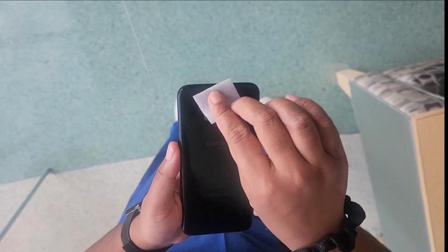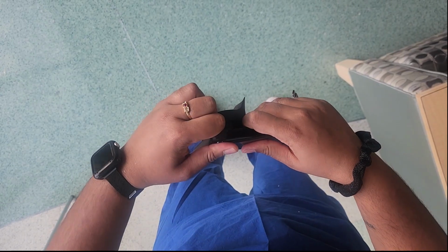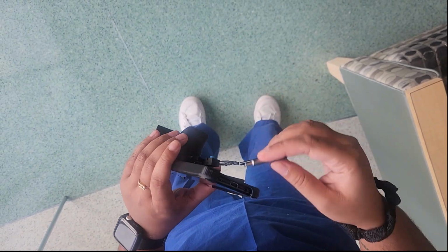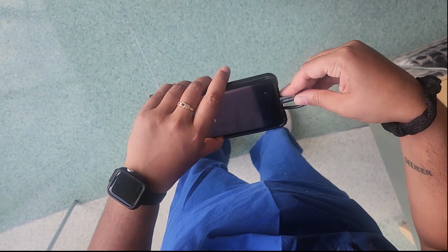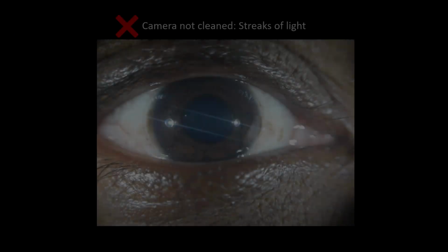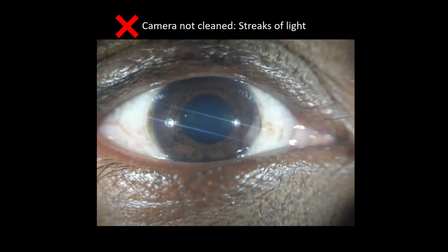Before beginning imaging, clean the phone camera with a sanitary wipe to make sure the device is secure on the phone. Make sure the LED light cord is plugged into the charging port. If you don't clean the camera, images can appear gray and washed out. If the image has streaks of light, you may also need to clean the camera or the lens.